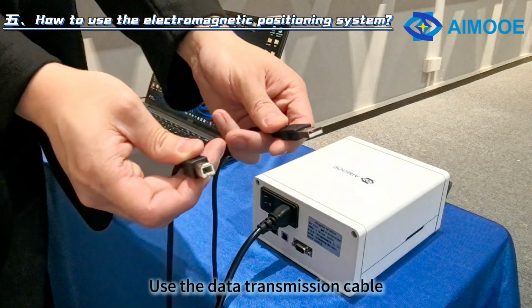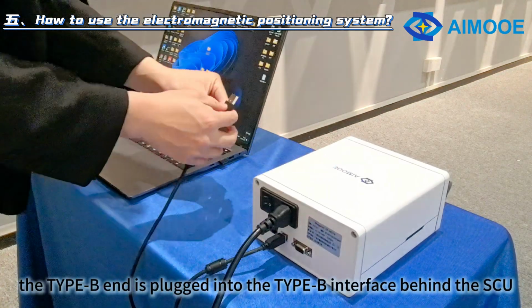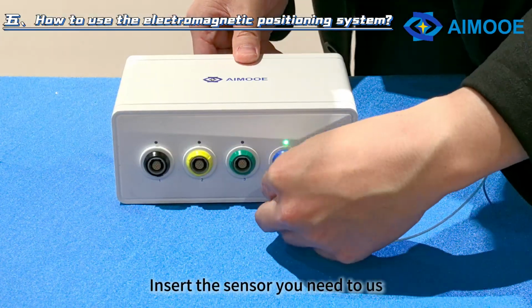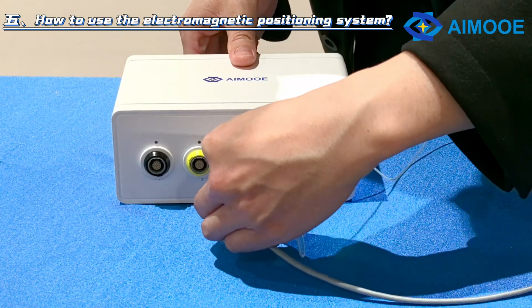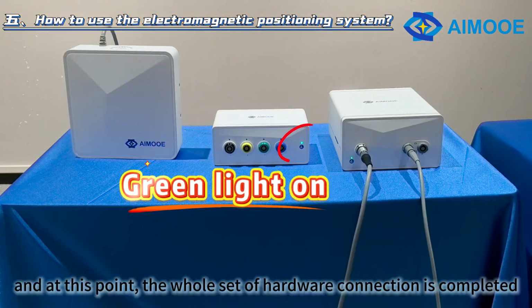Use the data transmission cable. The Type B end is plugged into the Type B interface behind the SCU. The USB end is connected to the computer. Insert the sensor into the SIU. Power on the device and the green LED turns on. At this point, the whole set of hardware connection is completed.